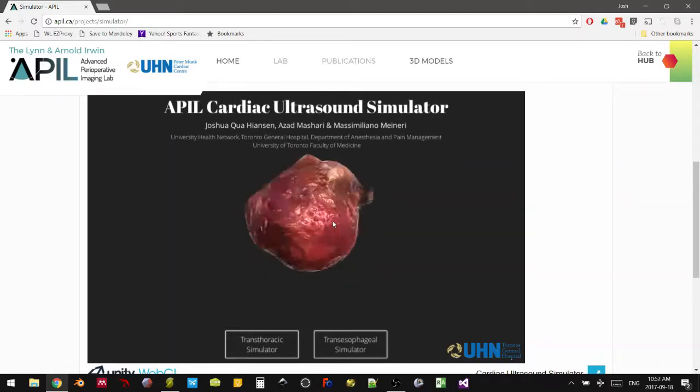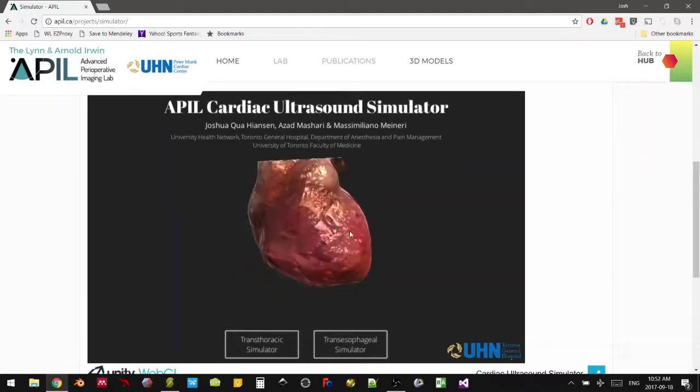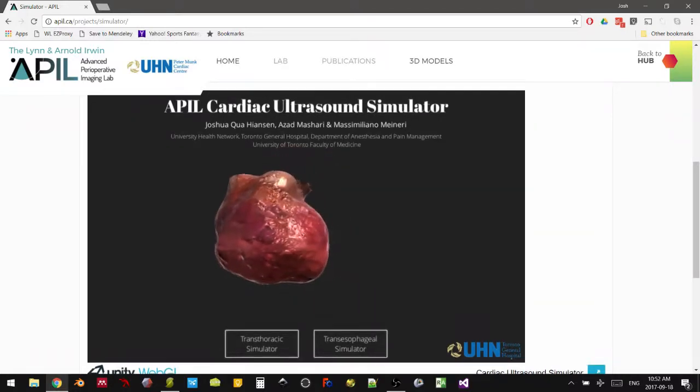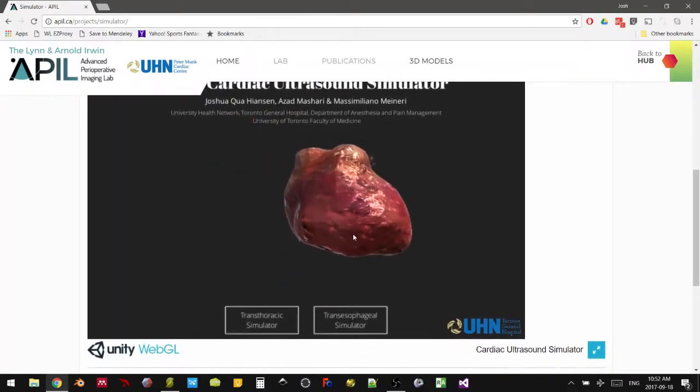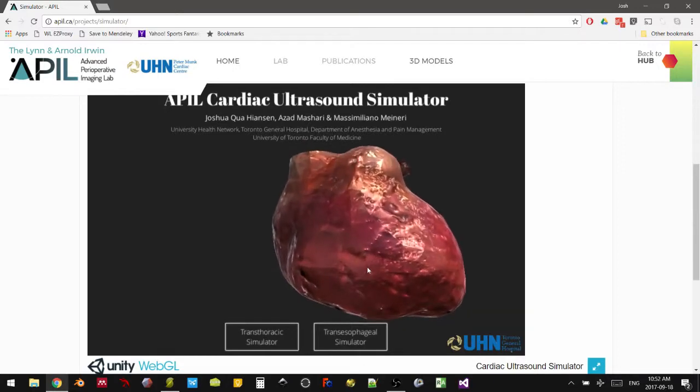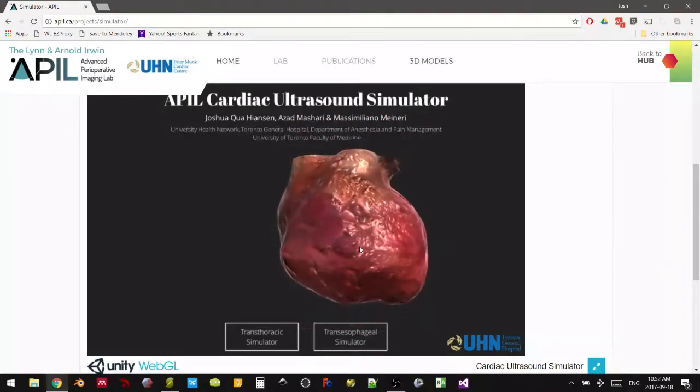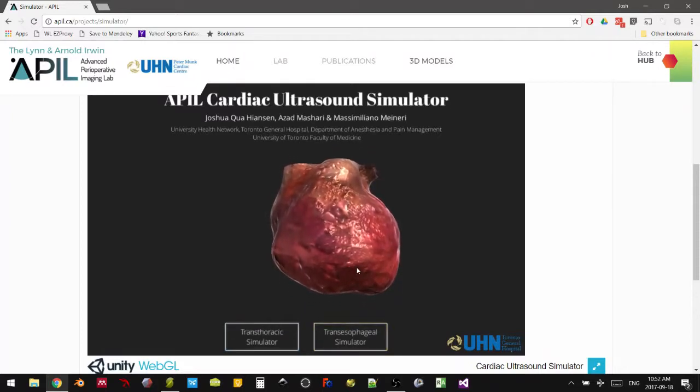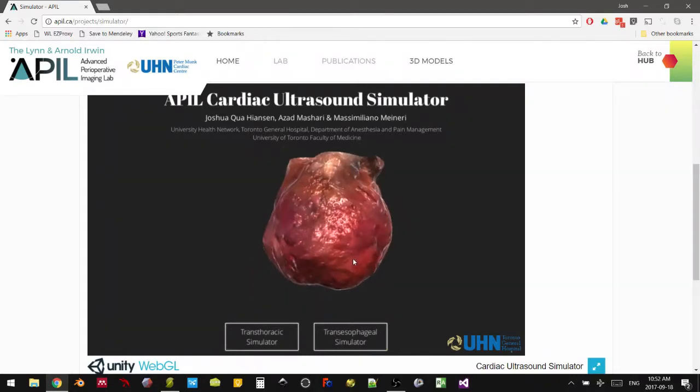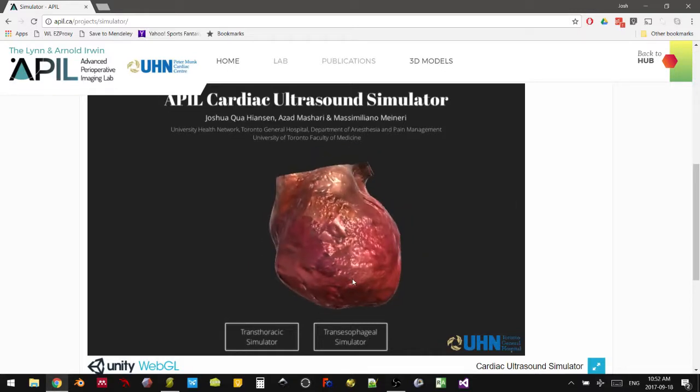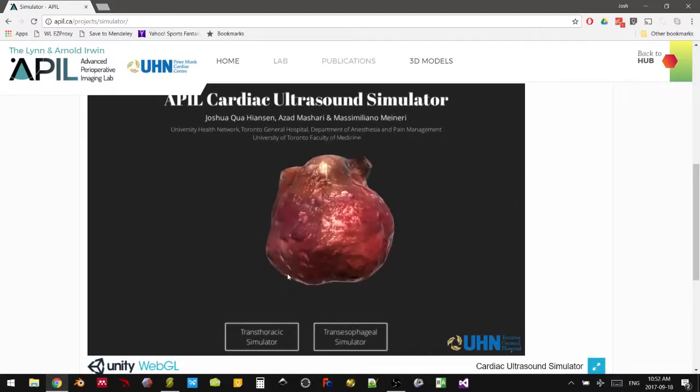We can play around with the heart a little bit here with some undocumented mouse controls, so right click to rotate around and middle mouse button to pan. You can zoom in and out of any 3D objects using the mouse wheel. The majority of these two simulators, the transthoracic and the transesophageal, are keyboard controlled because fewer people these days have a desktop mouse and I didn't want to have people rely on a trackpad to control the ultrasound planes.